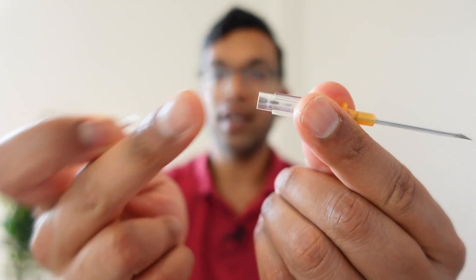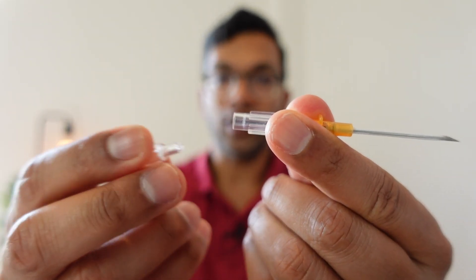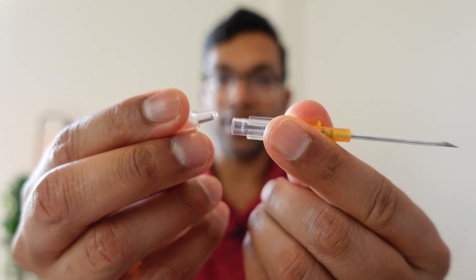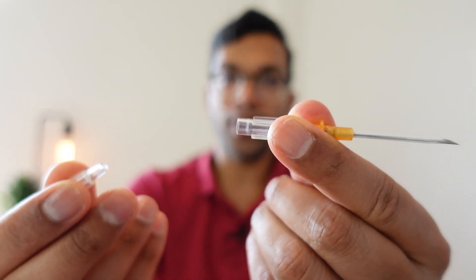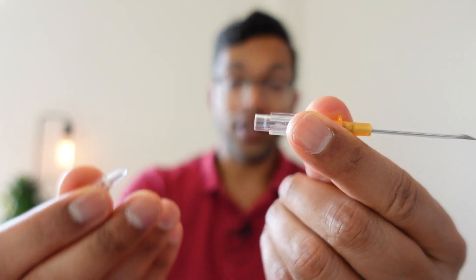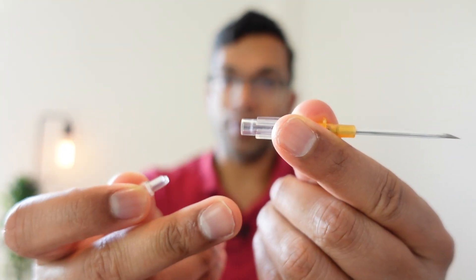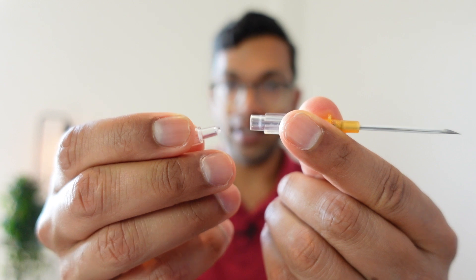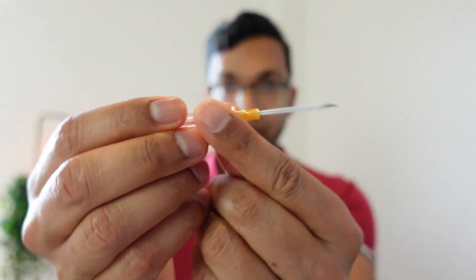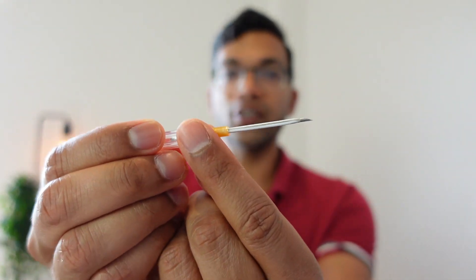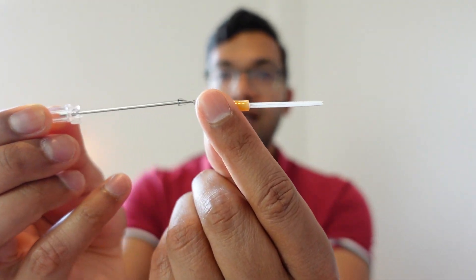And that chamber you can see will fill up with blood and will actually drip out blood or liquid without this cap. And in a future video I'll show you about one of the advantages of putting saline into that chamber instead of having air, but that's for another video as well.